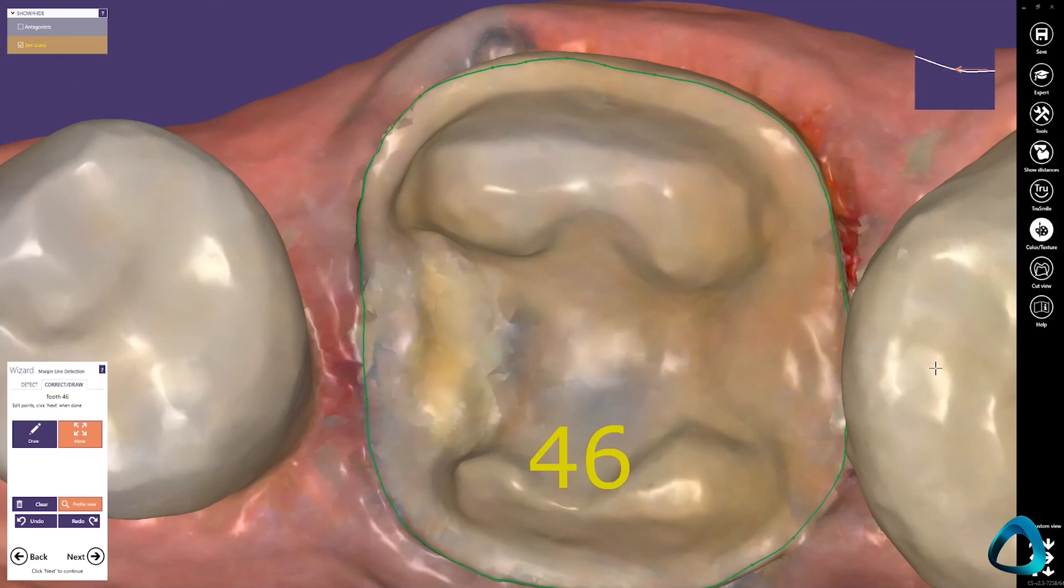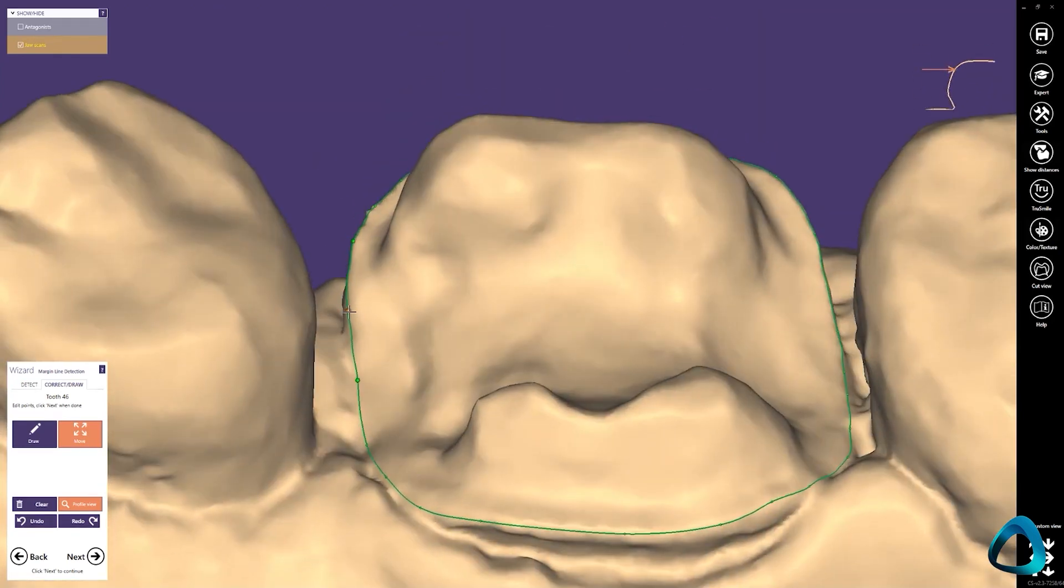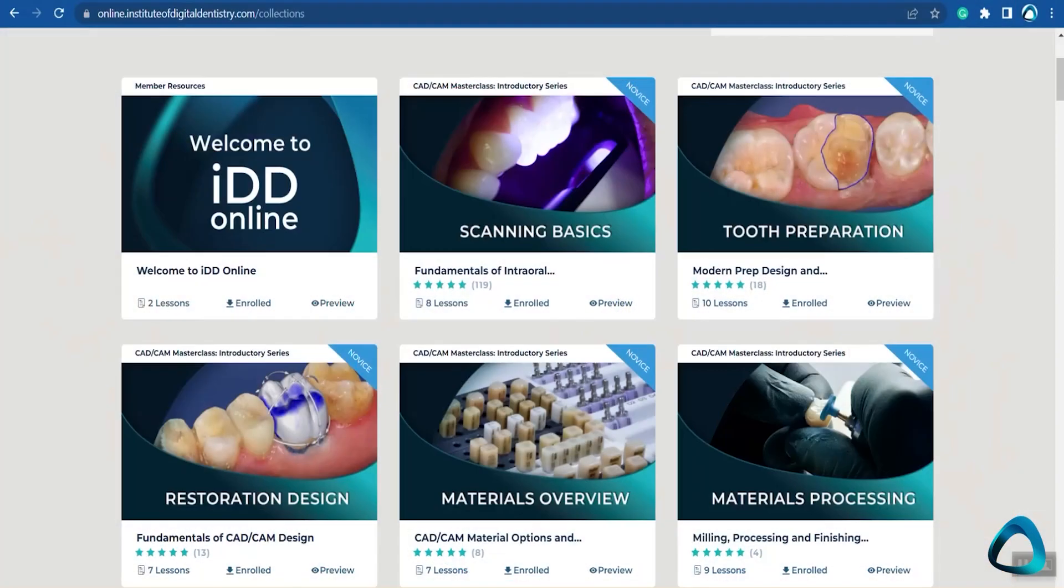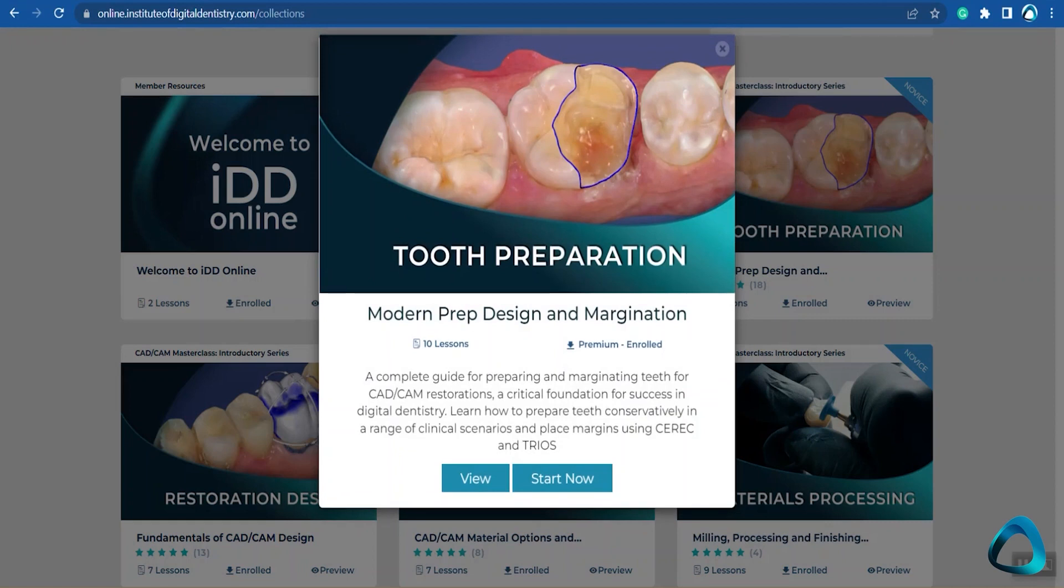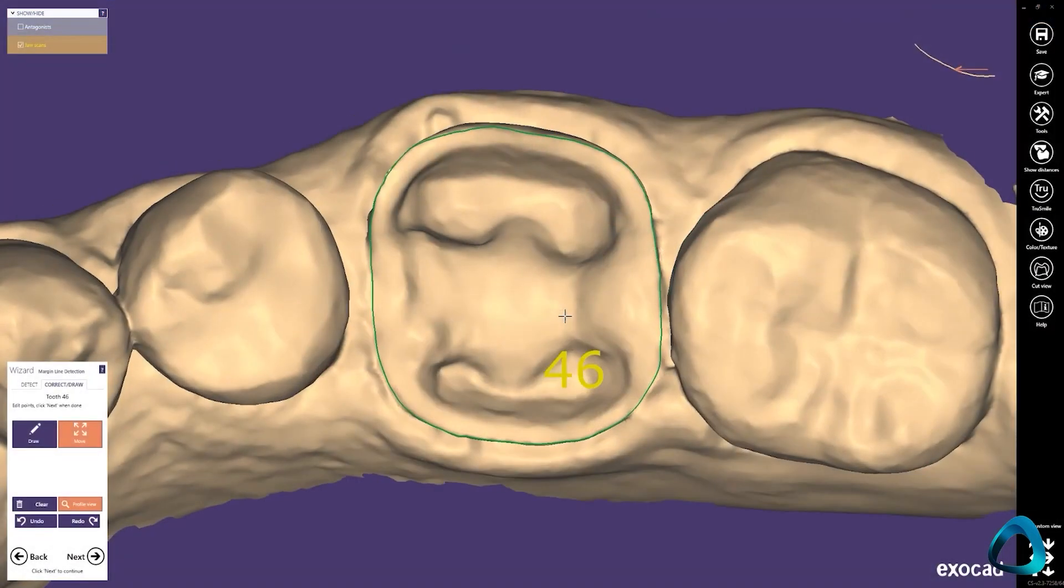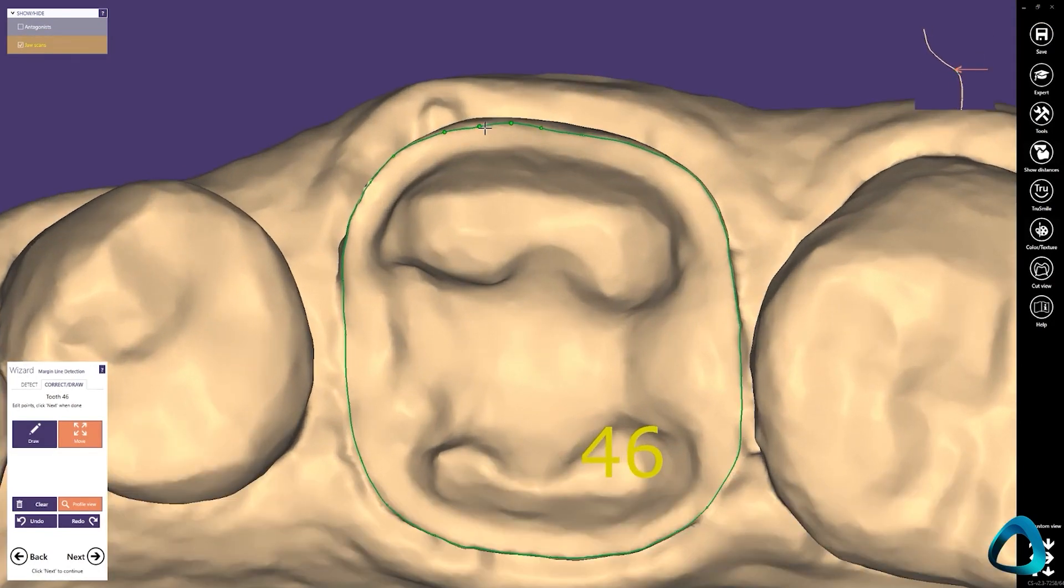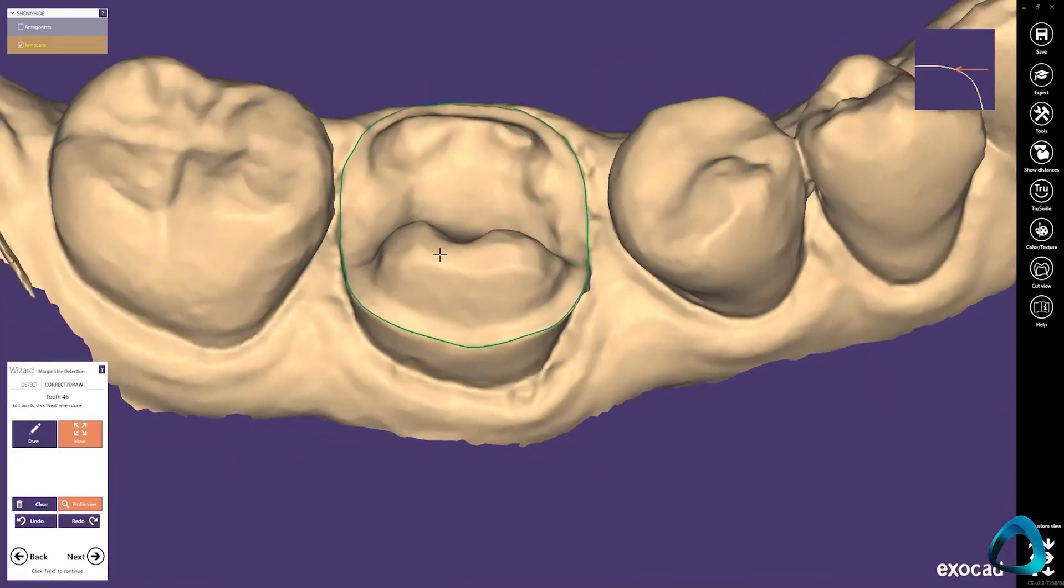Retraction and fluid management is also key here. If you need help with this aspect of tooth preparation, watch our modern prep design and margination course online. So as you can see, I'm drawing our margin line and once we're happy with this, we can proceed with the workflow.